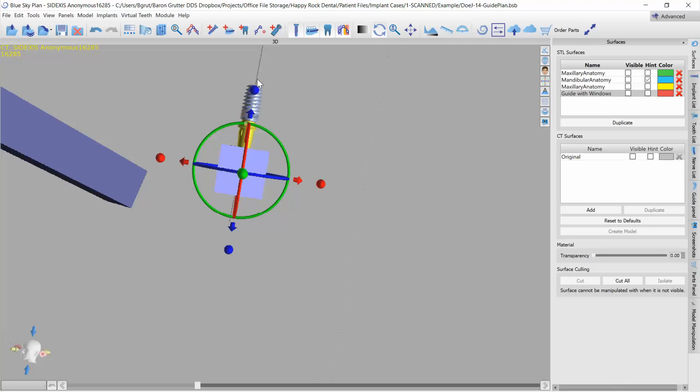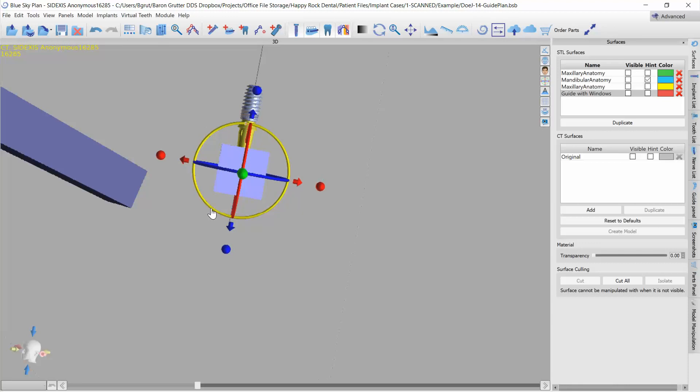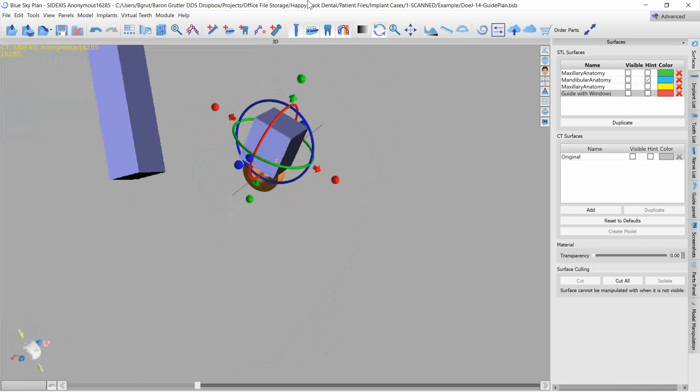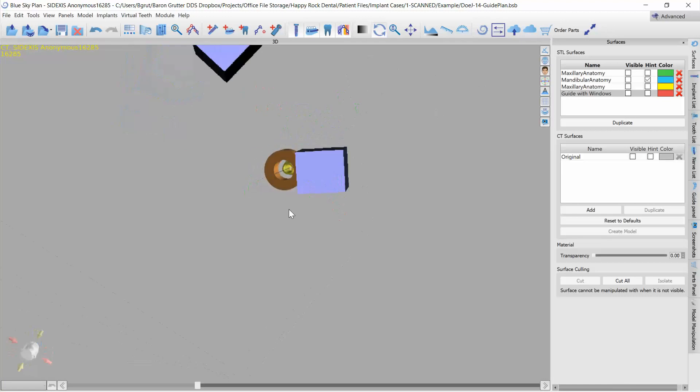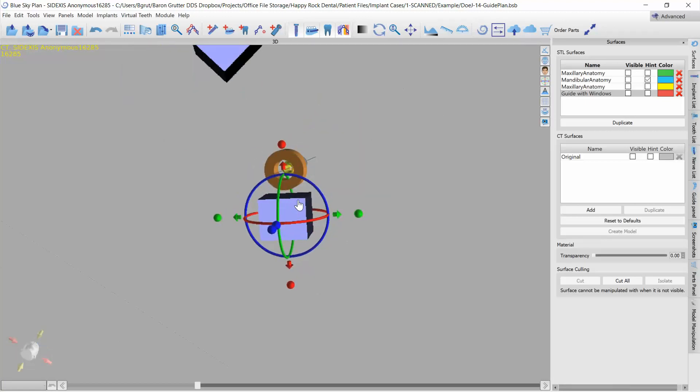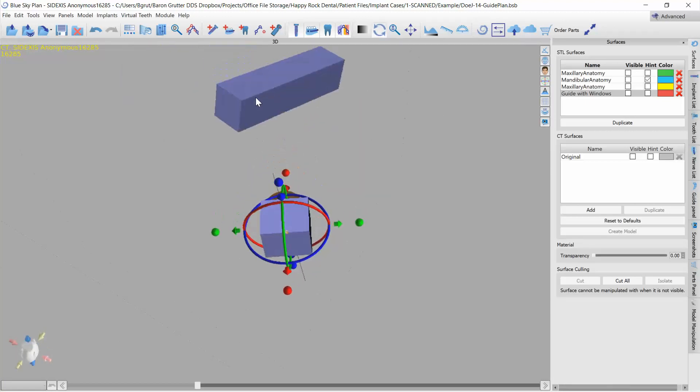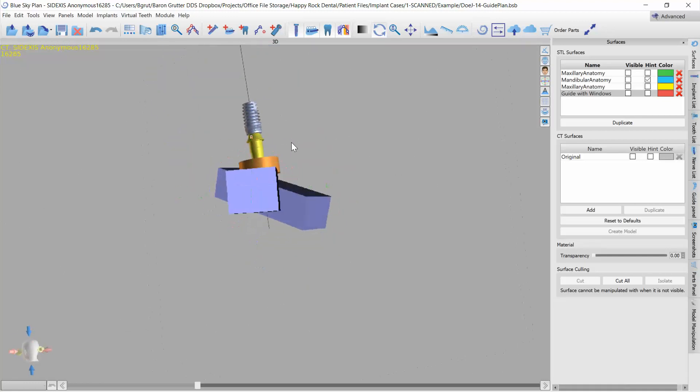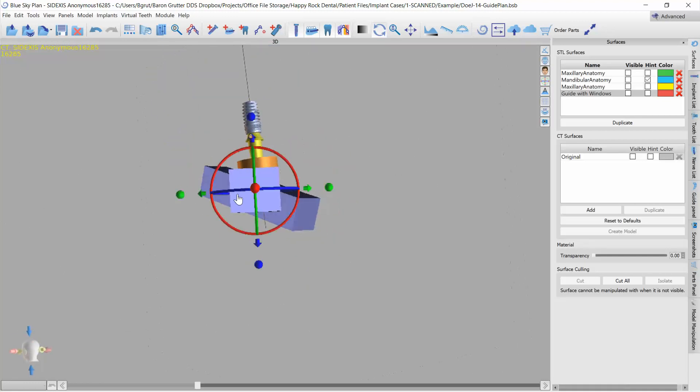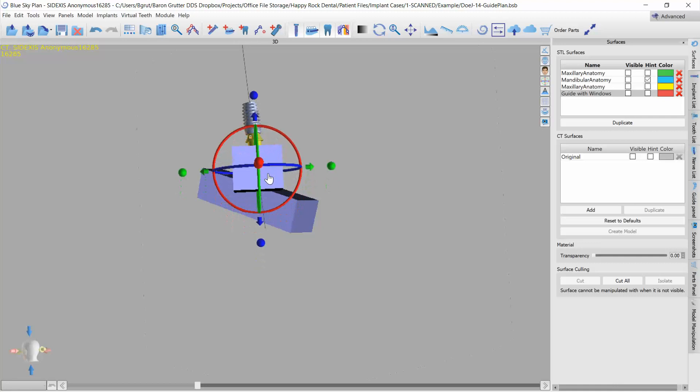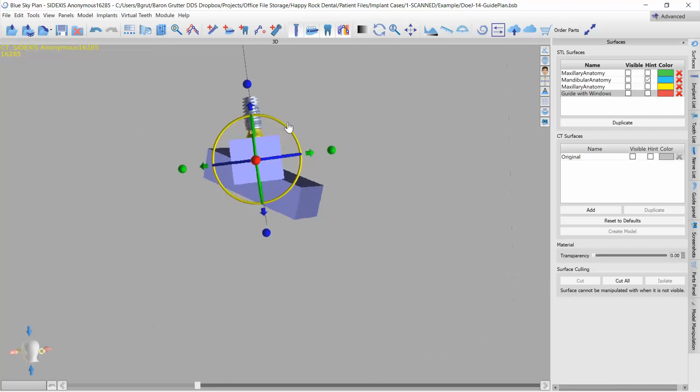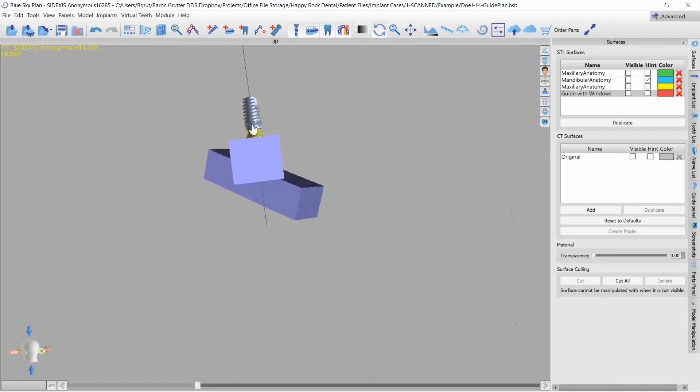So if I take this window and line it up in such a manner that this sphere, this alignment sphere, is centered on the implant, now I can look at it from this axis and you can see the alignment of that straight line and this alignment circle. So I'm gonna grab the green and I'm gonna line it up until everything looks pretty well parallel, looks good there.